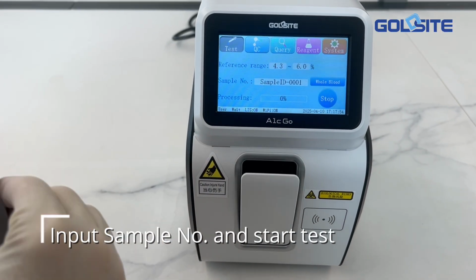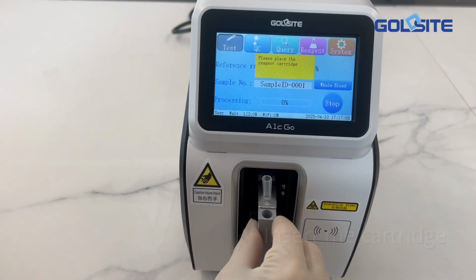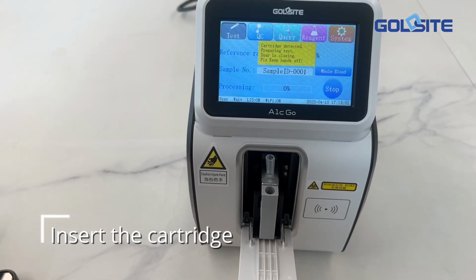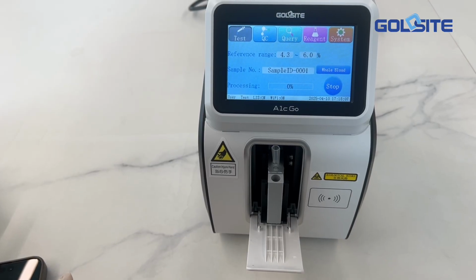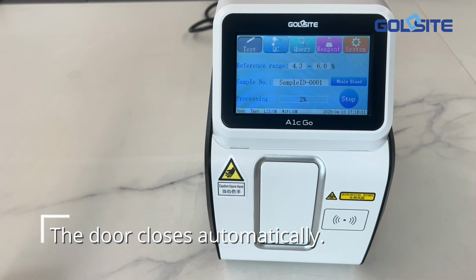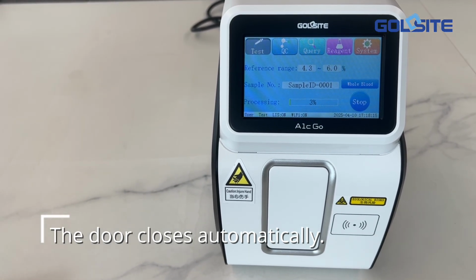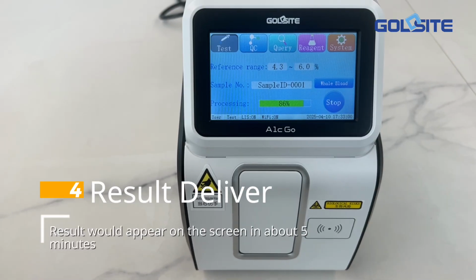Input sample number and start test. Insert the cartridge. The door closed automatically. Result would appear on the screen in about 5 minutes.